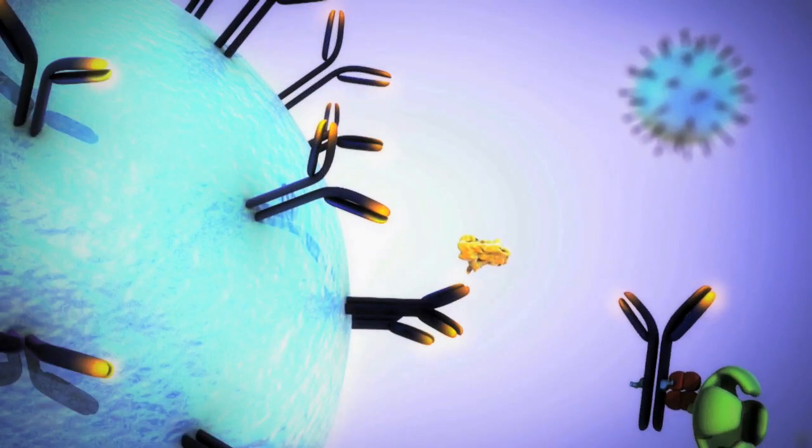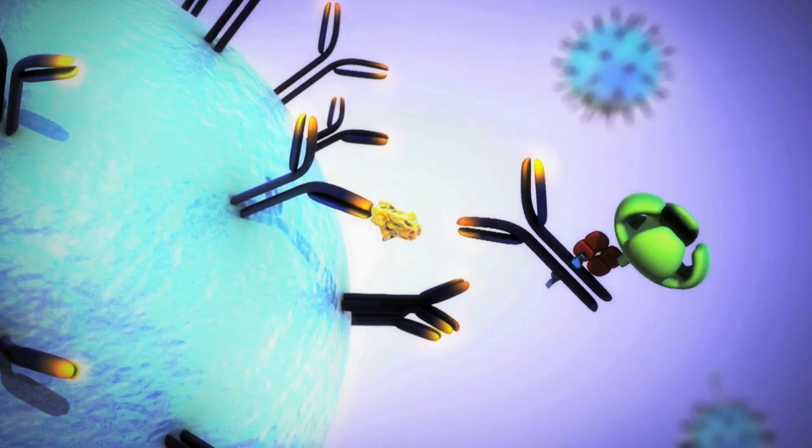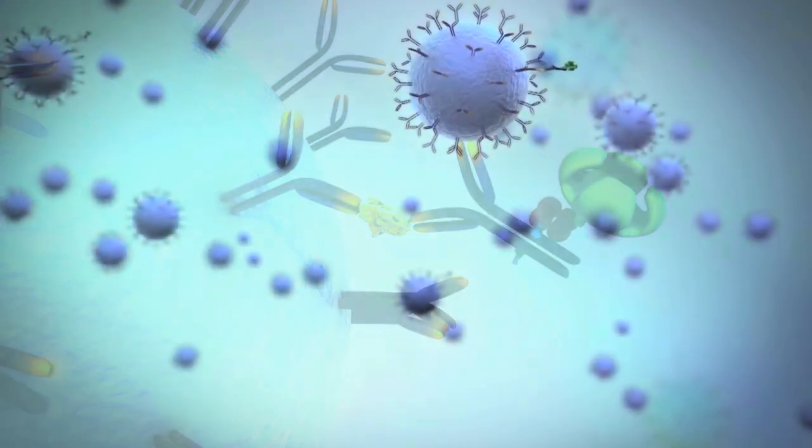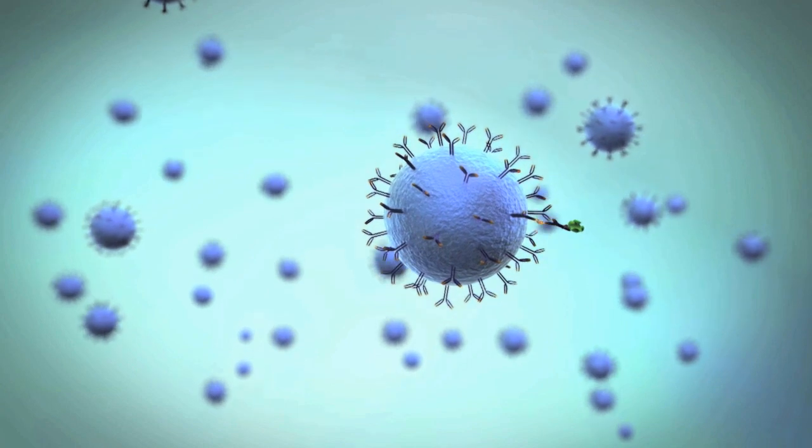The objective is to form an immunocomplex consisting of the bead, bound protein, and detection antibody. Beads are subsequently concentrated by magnetic separation and washed to minimize background.